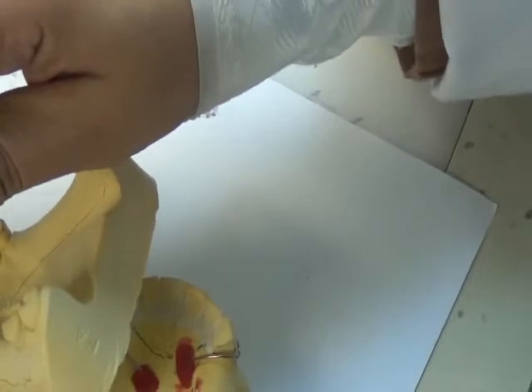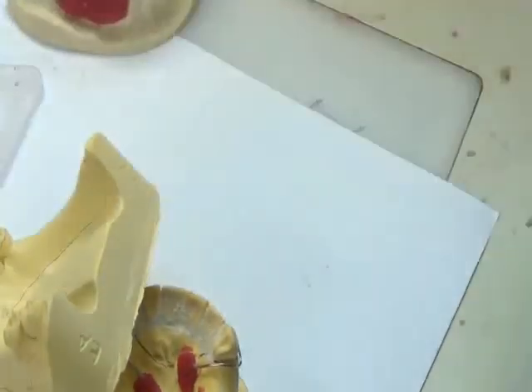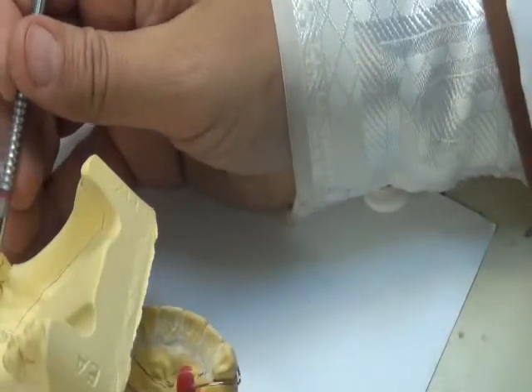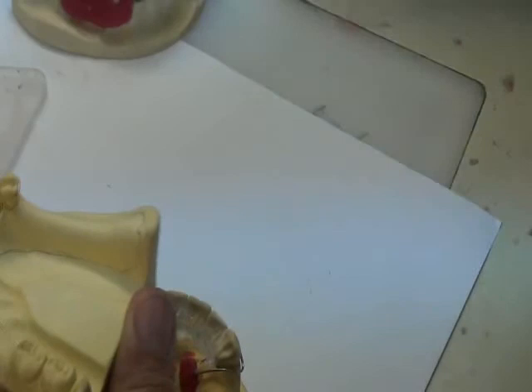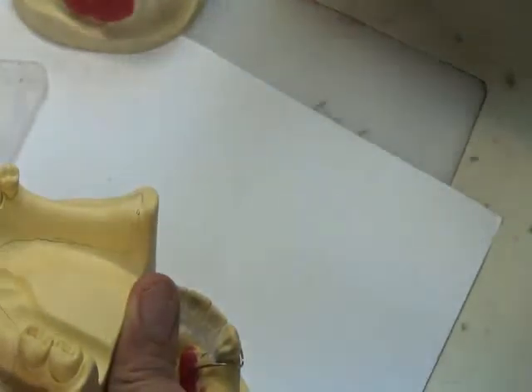You have done this before the wire bending. Then we came back on the surveyor, and with the chisel going downwards vertically, any excess of this plaster was removed in a parallel manner.